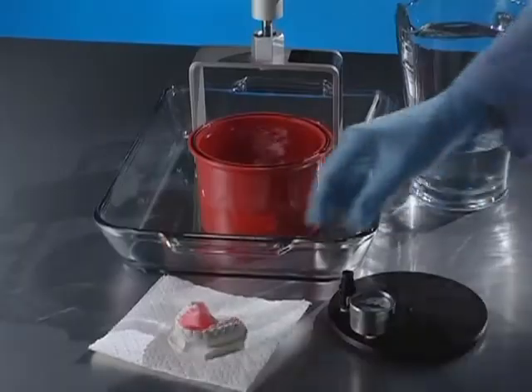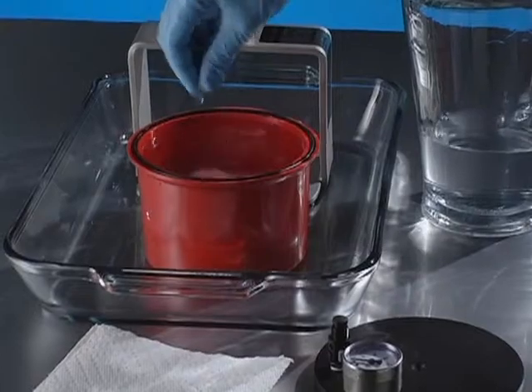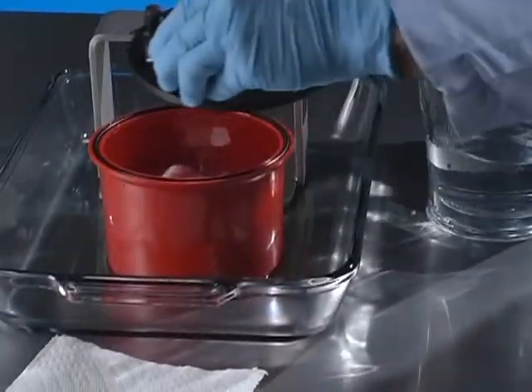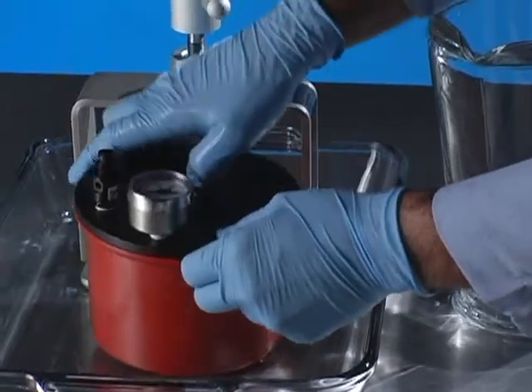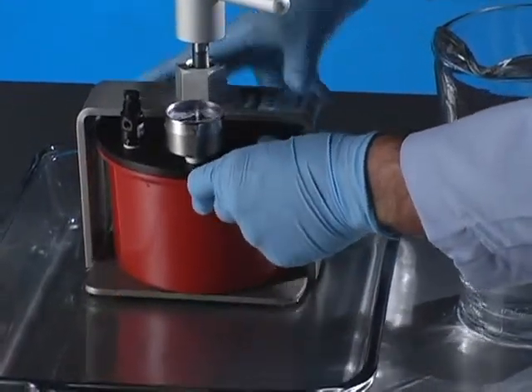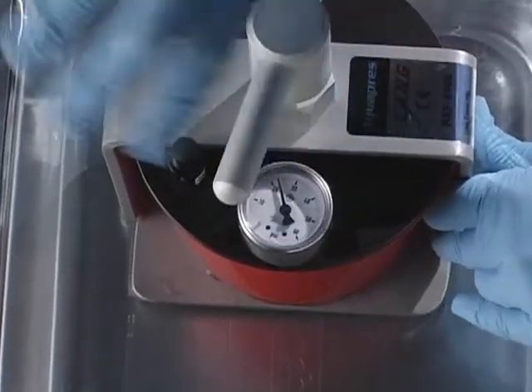Place the appliance into the filled bowl. Add more water if necessary to fill the bowl. Cover the pot so that the lid rests on the rubber gasket. Slide the pot into the press and tighten the lid. Turn the handle until the pressure gauge reads about 30 psi.